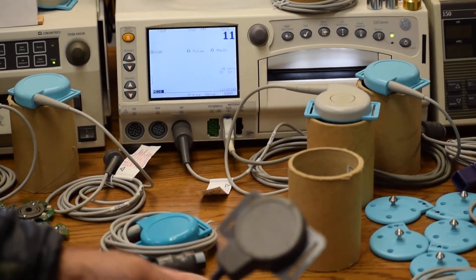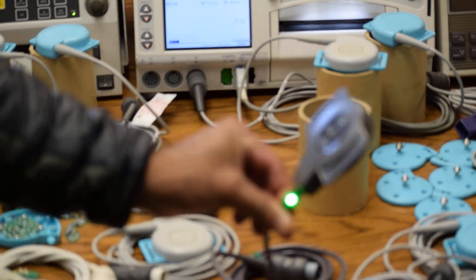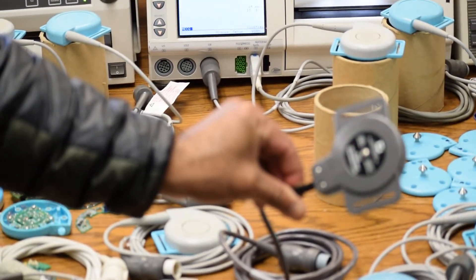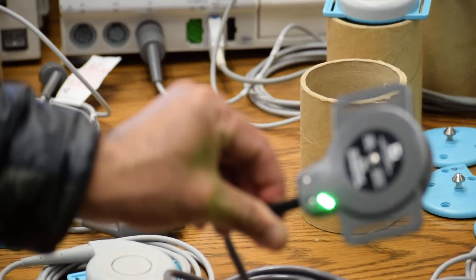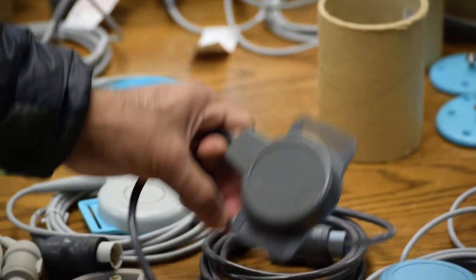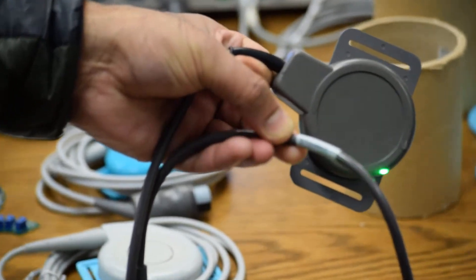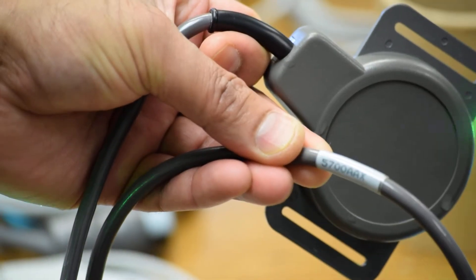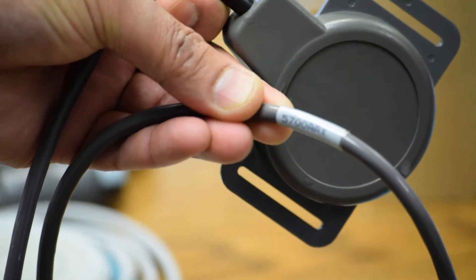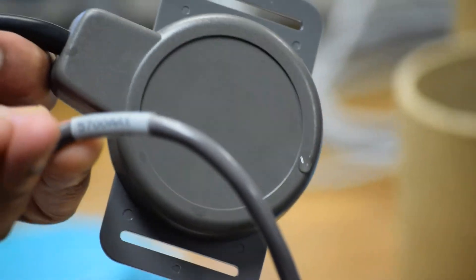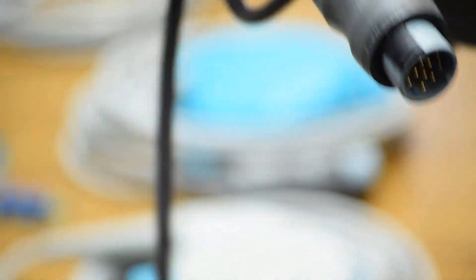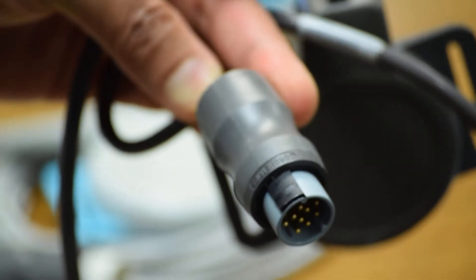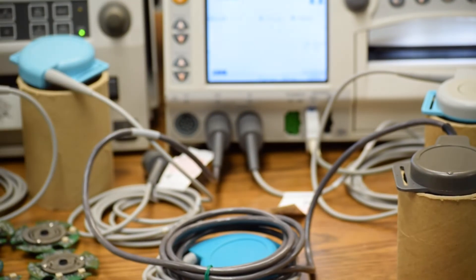This is the front face of the transducer. This is the top side. The model is 5700AAX. The connector is original from GE. This is 100% OEM transducer, so the connector is also from GE.